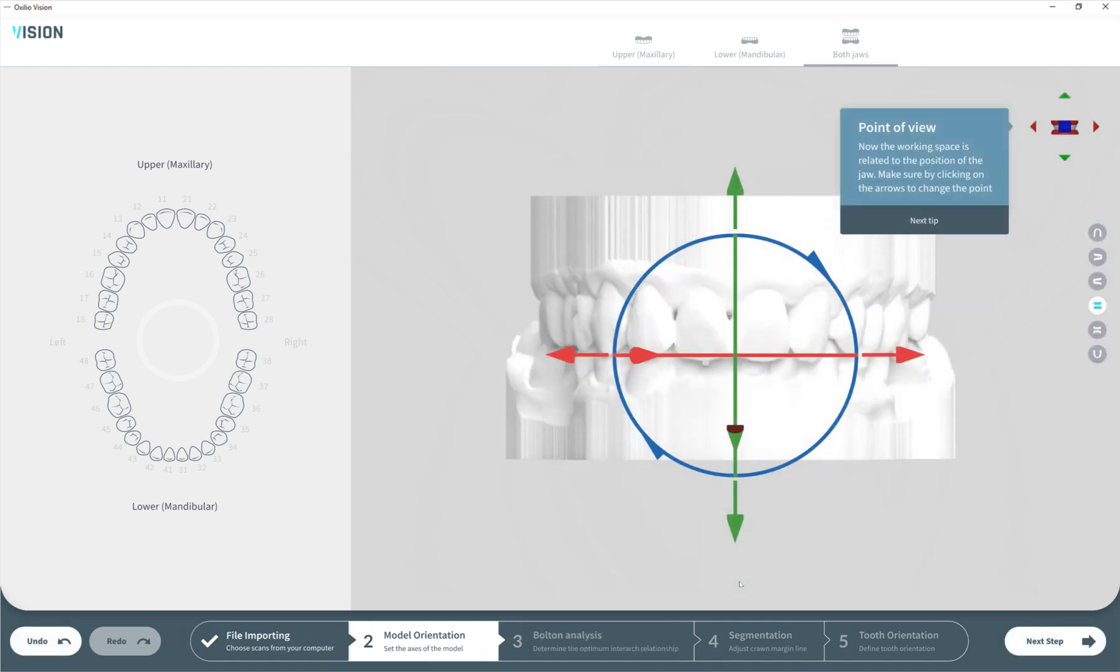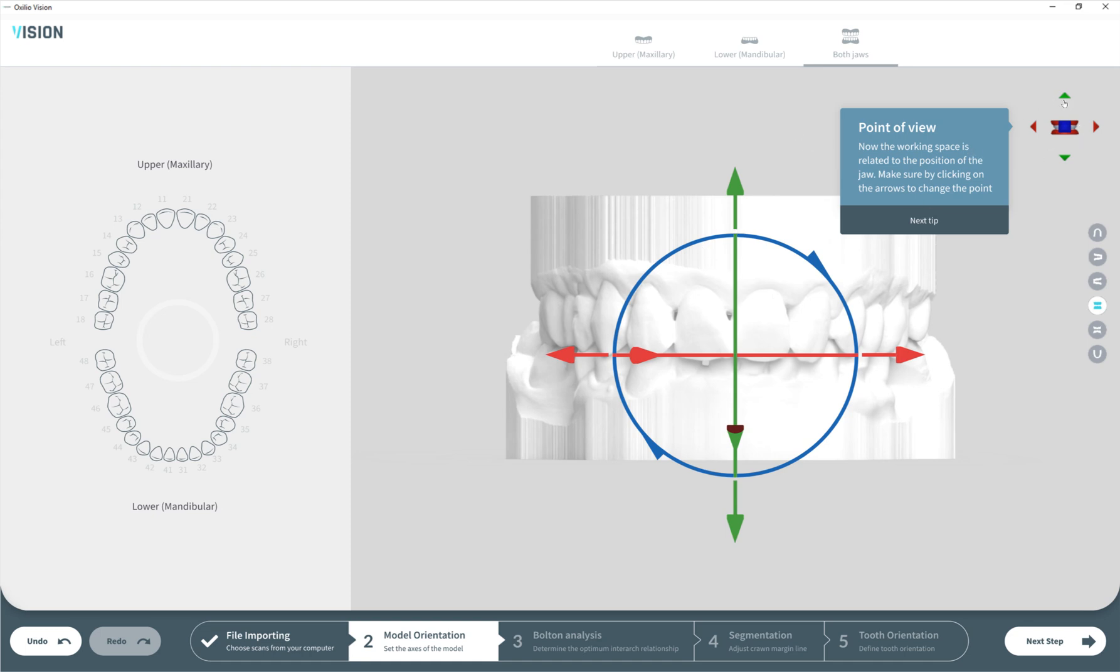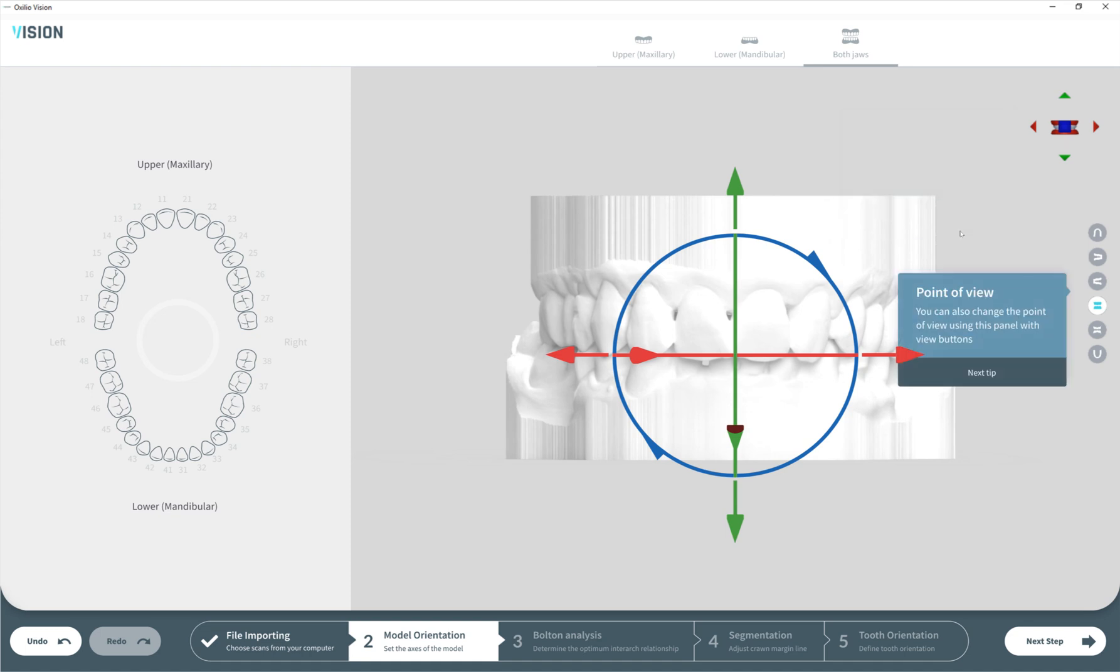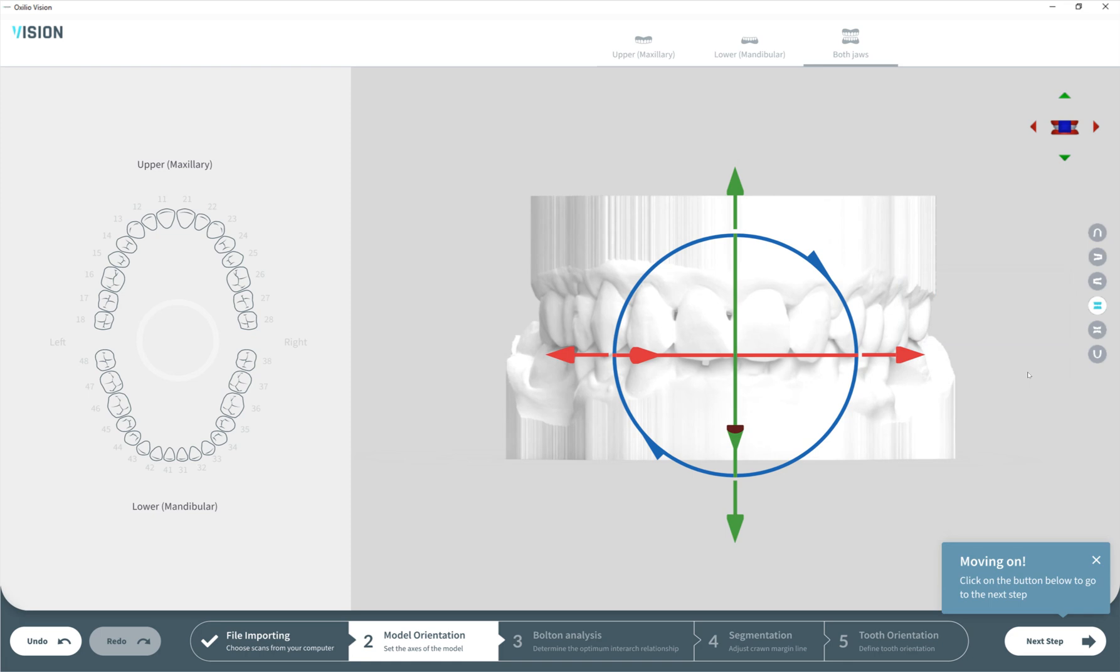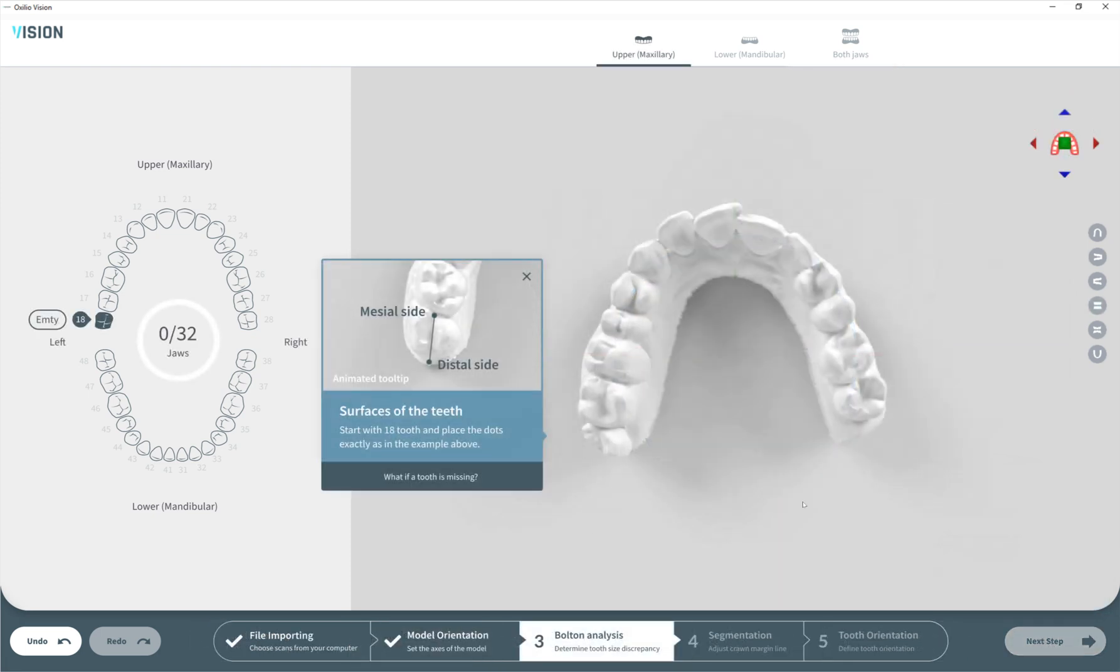When finished, we click apply. Now we can see the complete model in the correct position. From this window we can tune it up and move it a bit from different points. Above we're seeing a navigator - the design will be slightly changed later. We continue to see tips with guides and help on how to navigate. The second step is complete.